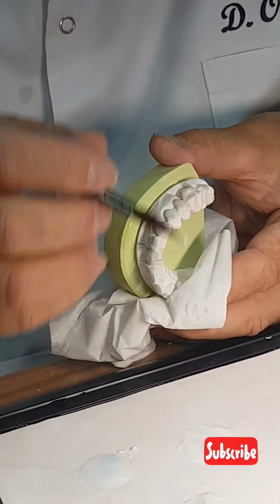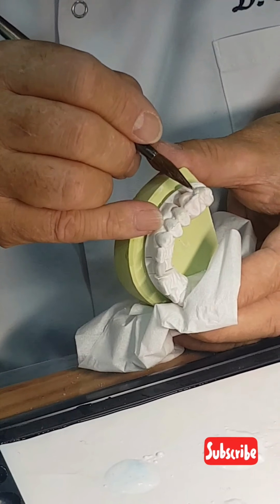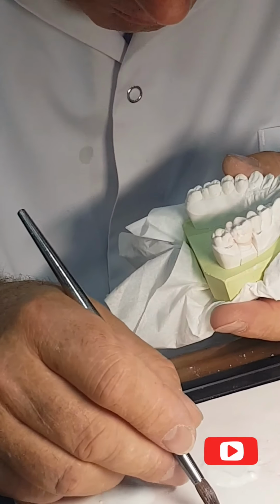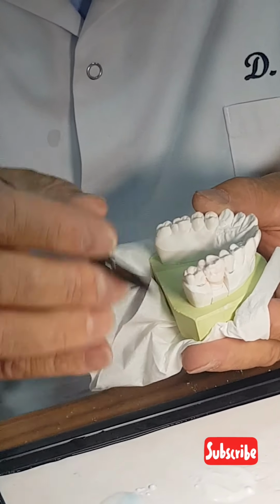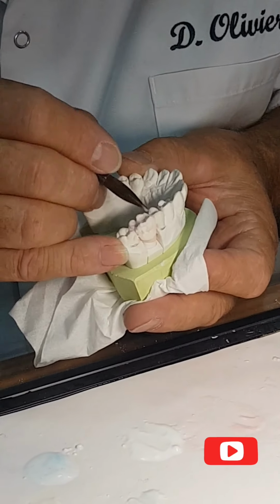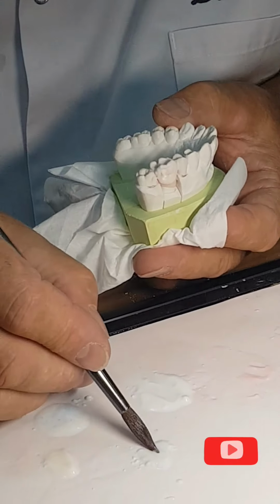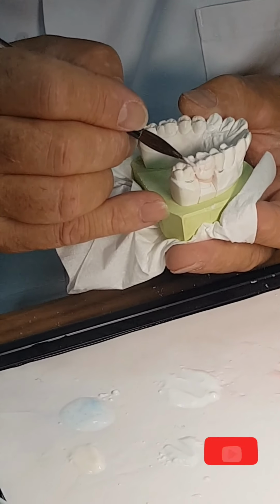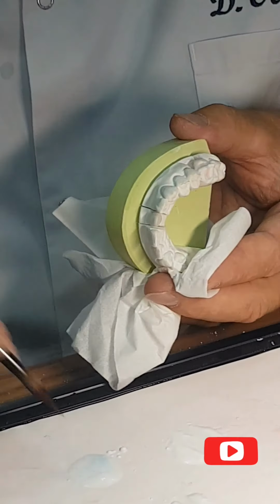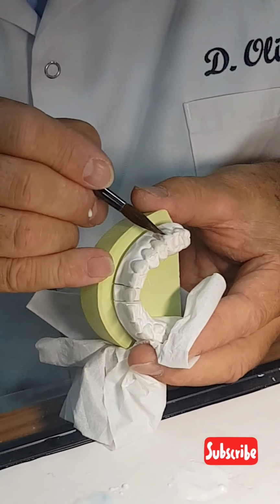After, it depends, after the translucent, because sometimes the translucent is more yellow, sometimes after the translucent. Look, I'm going to really draw a precise crest here, all over my crown. In the ridge, all of them. Here. 10% over the final size. This enamel white, huh? Enamel white. And so now I finish with the normal enamel. That's all. Everything is under control with that technique.